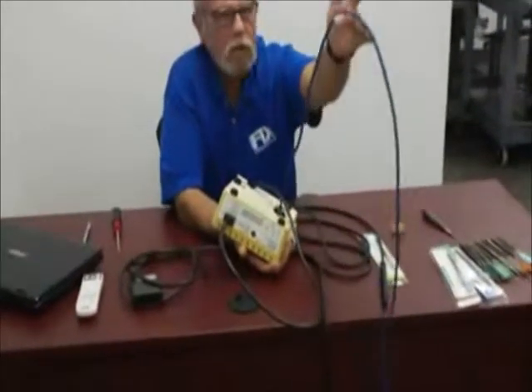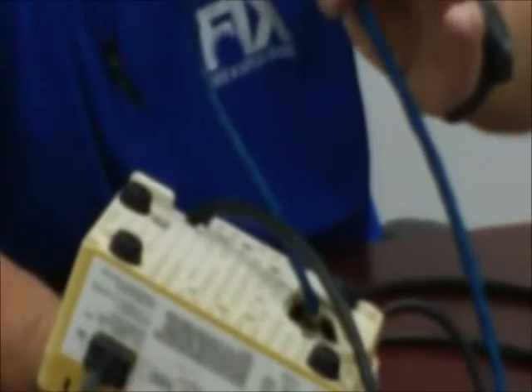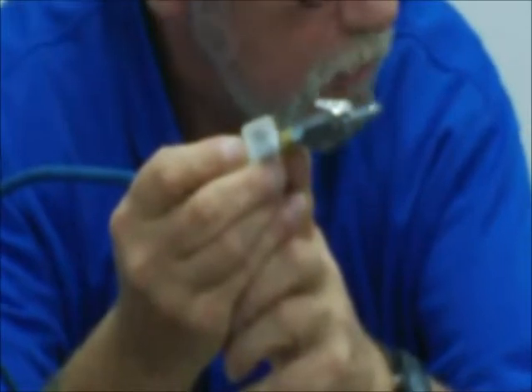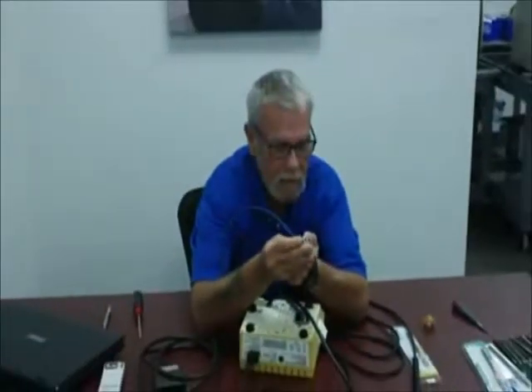Our other component is an incoming water line, which is usually blue to specify water. If you're in the office and don't have blue line, don't let that stop you — put whatever color line you've got. This is a high-pressure water line that distributes the water pressure the delivery system provides. On one end is a male quick disconnect, a 1/4-inch male quick disconnect, available from DCI part number 0012 through DentalFix RX. This plugs into a female quick disconnect and supplies water to the machine.